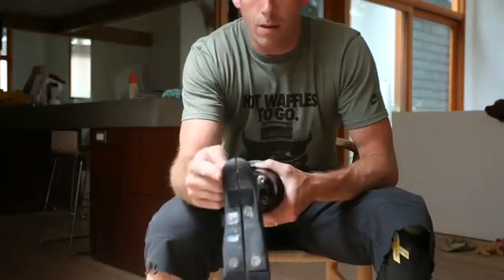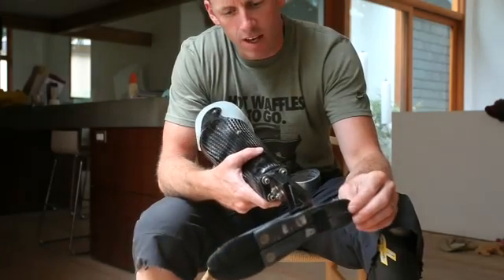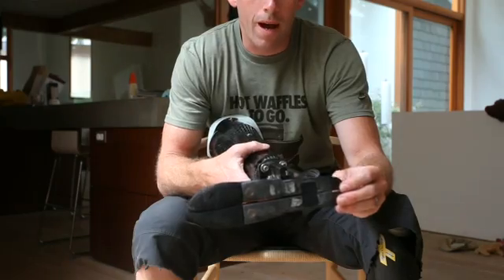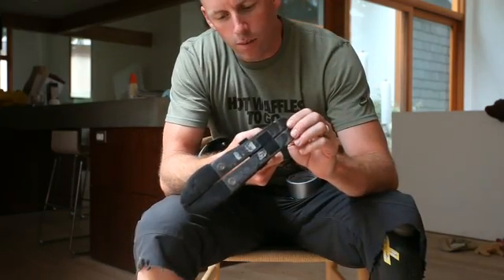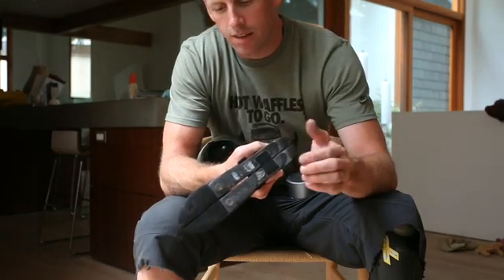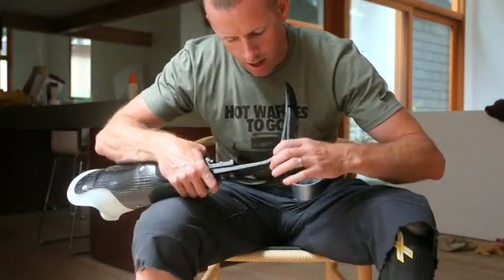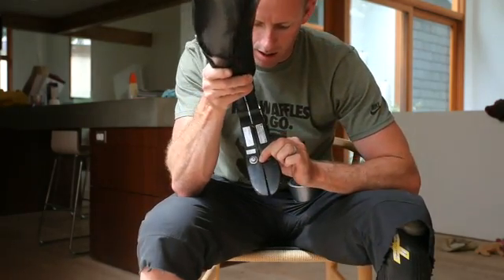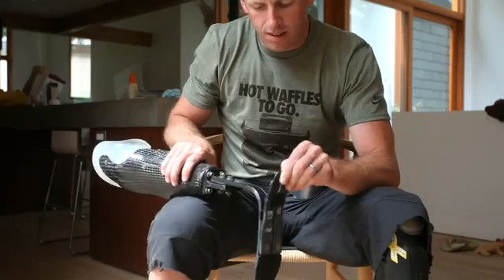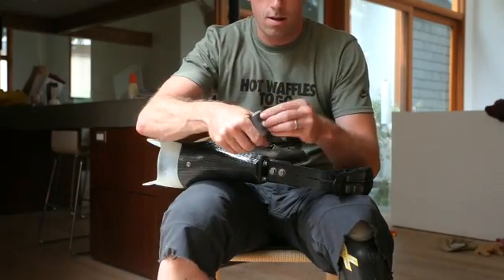Today I broke my leg — not my real one, but my fake one. It's in pretty rough shape. I know if I took it to my prosthetist he'd say it's broken and I need a new one, which is true, but I also need to get around for the next little while. The carbon down the side is all cracked and there's one major crack on the right-hand side of the foot. My goal is to just cinch everything up a little bit tighter, and the method is duct tape.